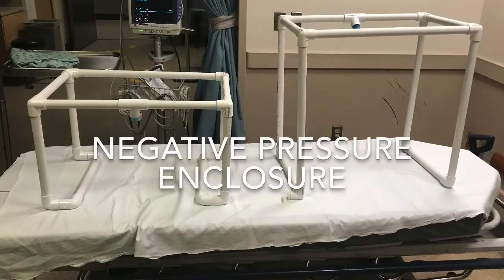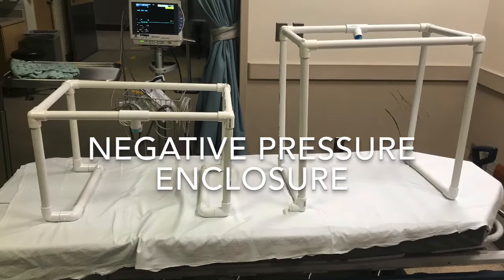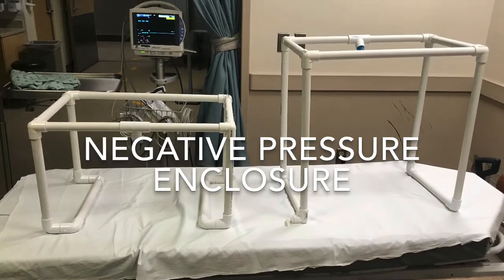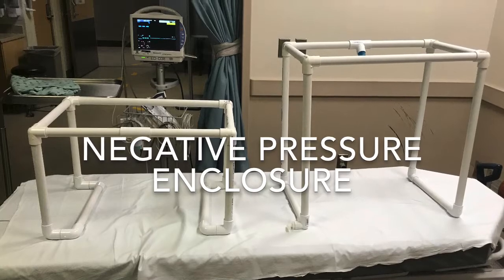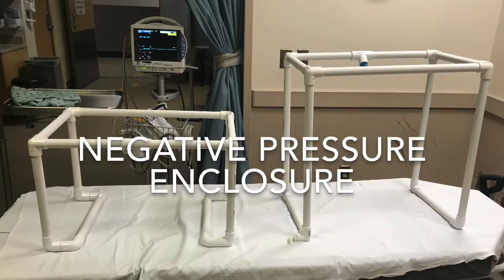This video is a demonstration of the negative pressure enclosure, its setup, use, maintenance, and breakdown, and is geared specifically for emergency department technicians, respiratory therapists, and nursing staff to get familiar with how to use and operate this device.